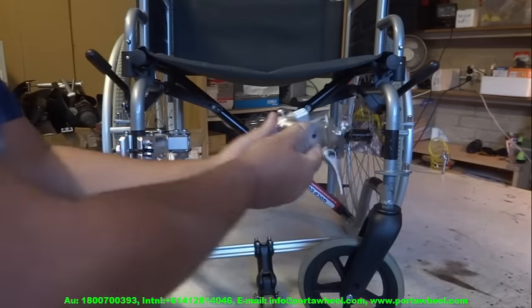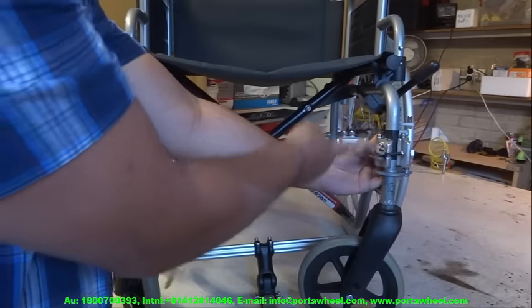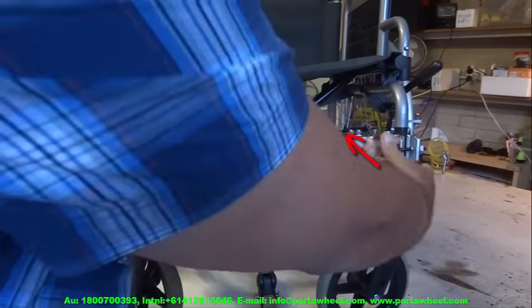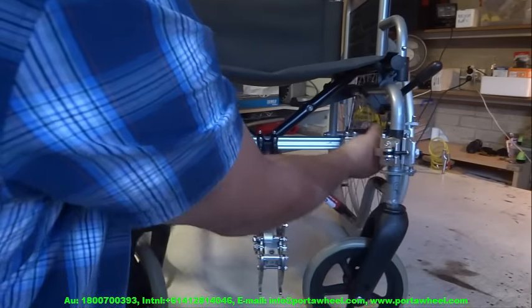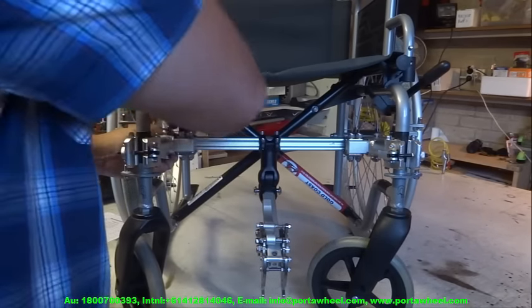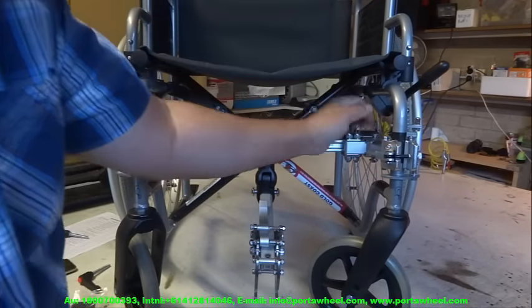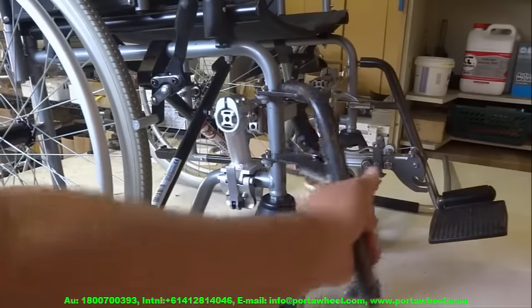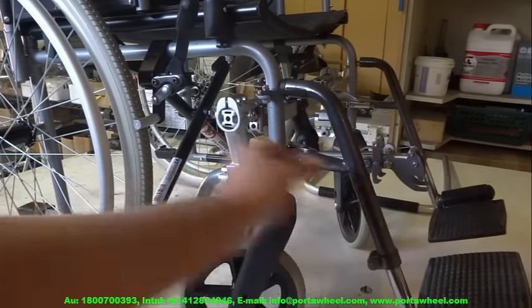You can see that the cam clamps in this case are pointing inwards, and the tow bar brackets attached to the tube clamps have the safety pin holes pointing backwards, with the threaded holes at the bottom. This is the preferred method for all standard wheelchairs, but you can adjust the configuration if your wheelchair is slightly different. Here is an alternative method of attachment to the horizontal tubes to keep the leg rest nubs clear.